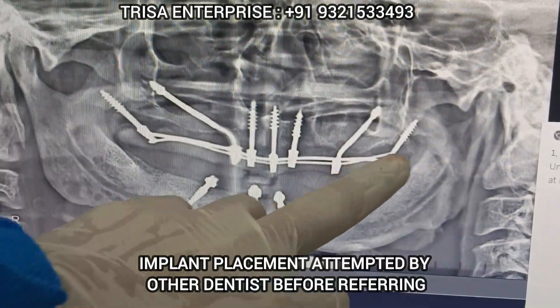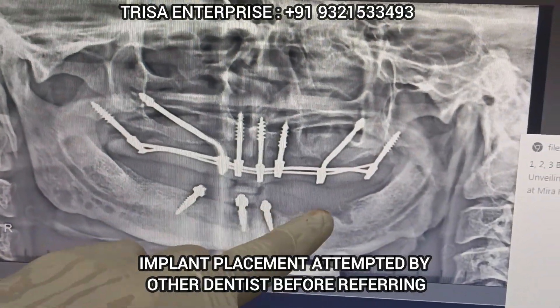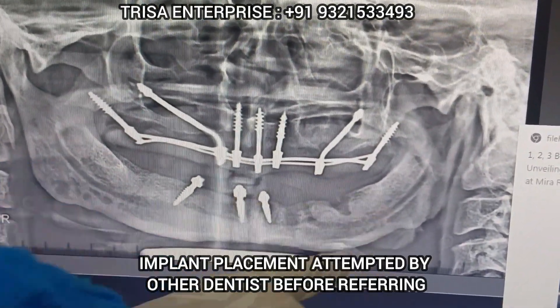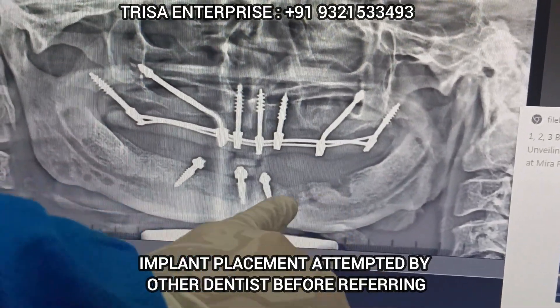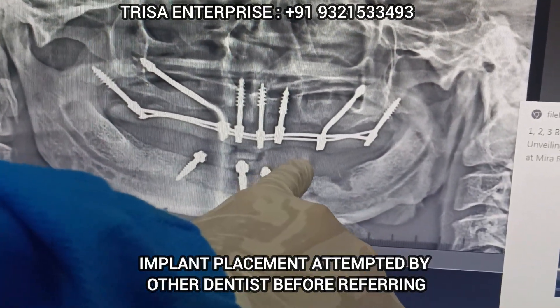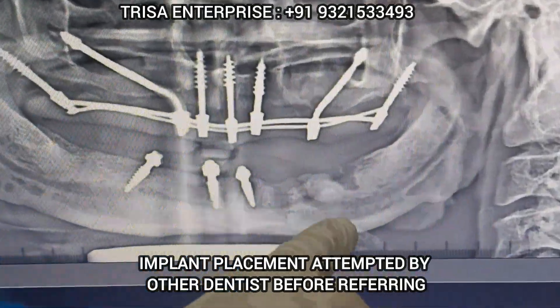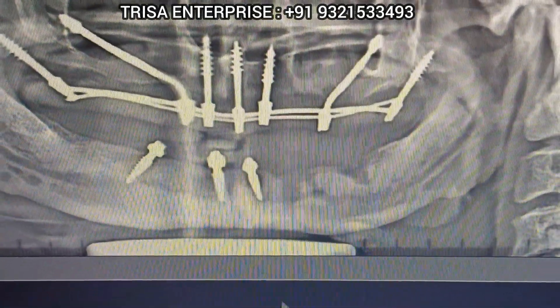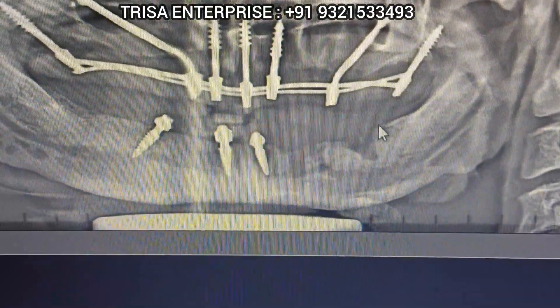The upper jaw is already finished and the lower jaw is mostly done. Now we are working on the left side with a buccal bypass. You can see some rarefaction here which I'm going to avoid. I'm going to do the buccal bypass here — where my cursor is. The ideal position would have been this position here.